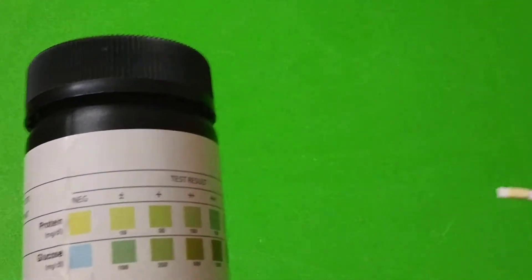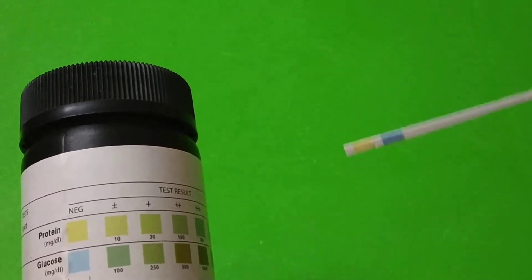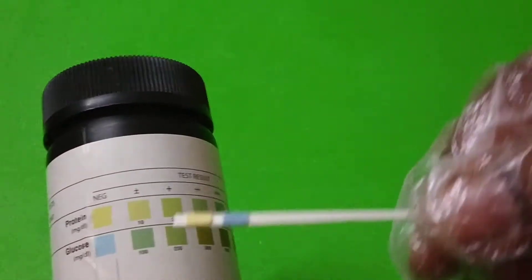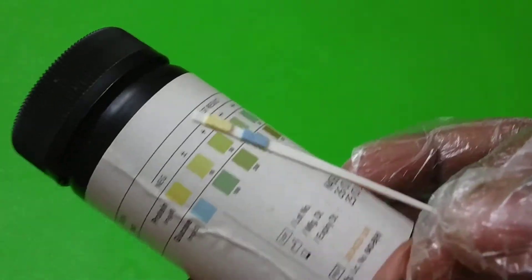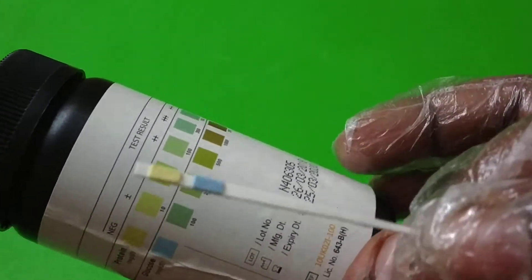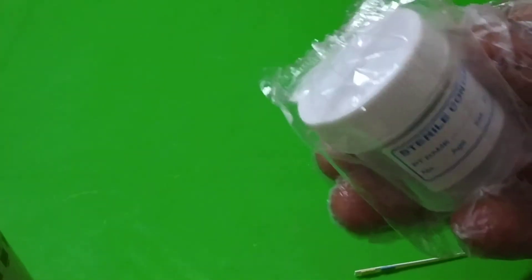What we have to do is collect a sample of urine, dip this stick inside the sample, and check the color.